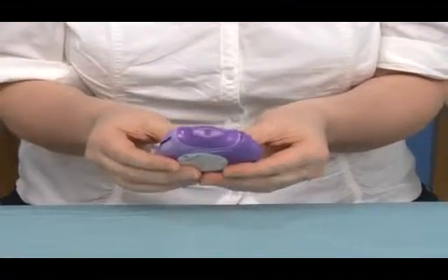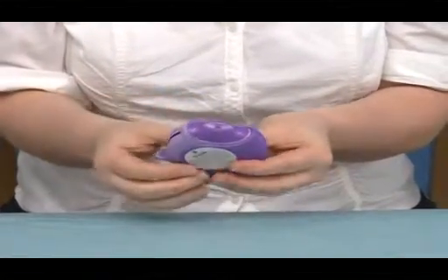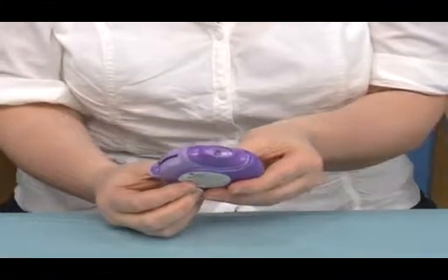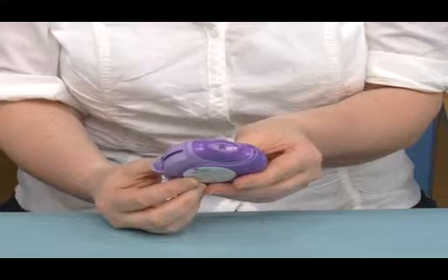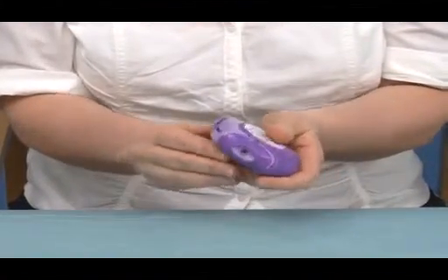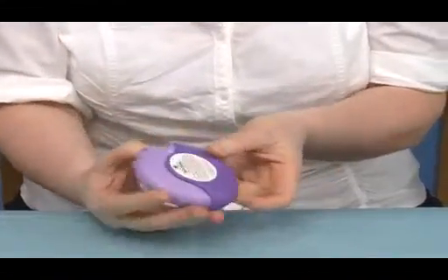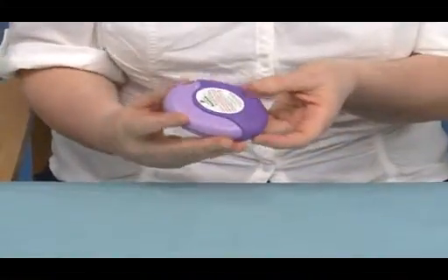Again, the patients will breathe in, breathe out, have a good seal round the mouthpiece and inhale deeply. They will then remove this from their mouth, closing their mouth and counting again up to 10 seconds if this is possible. To take a second dose, they would close the device and start the process again. I will now demonstrate how to use an Accuhaler.